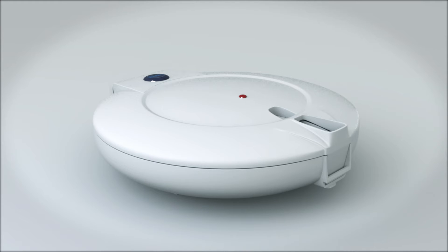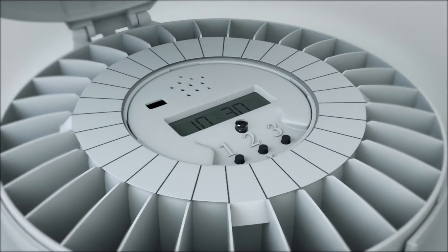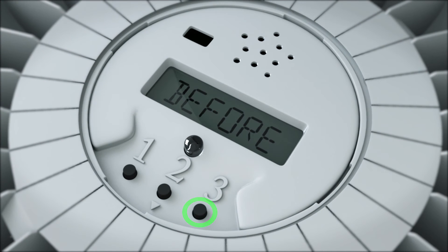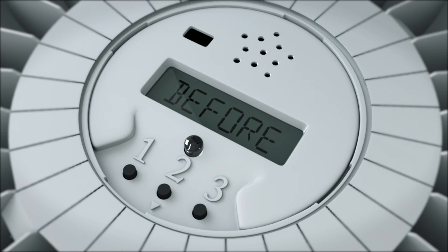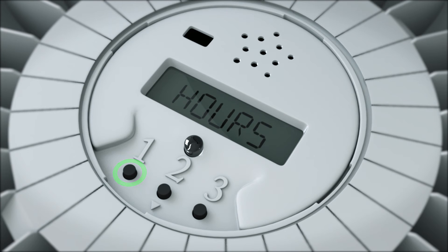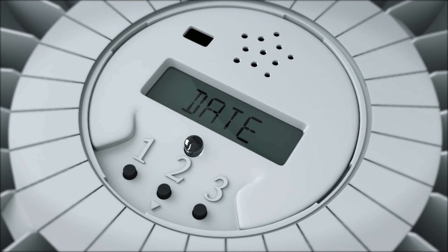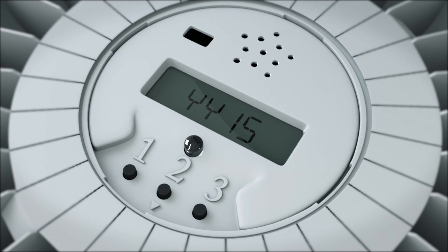First, access menu B by holding down button 3 until Before appears on the screen. Then press button 1 until Date is displayed. Wait a few seconds and YY will be displayed.